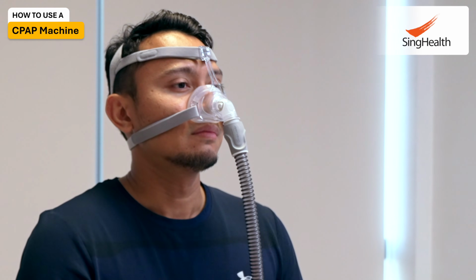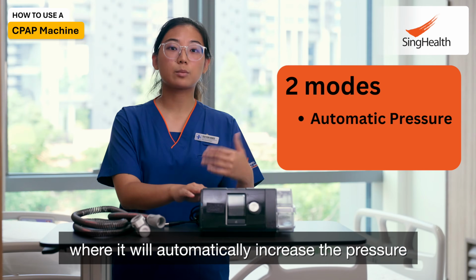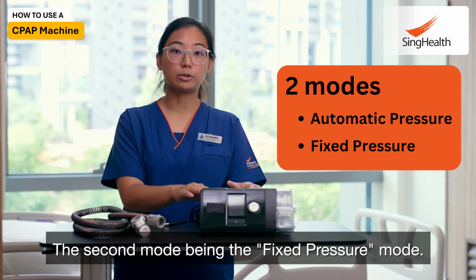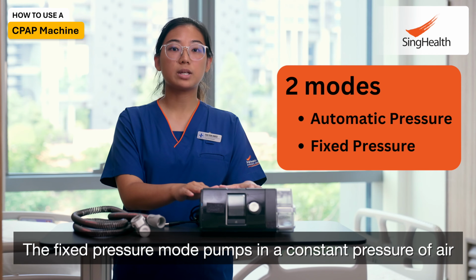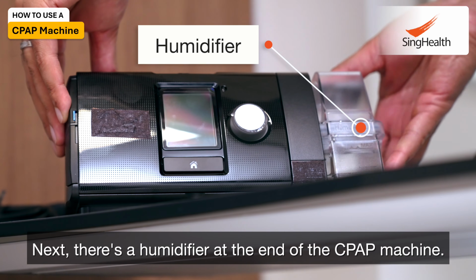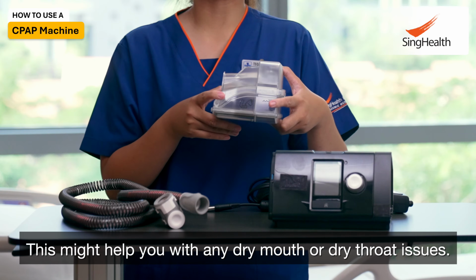It has two modes. The first being the automatic mode, where it will automatically increase the pressure when you sleep at night. The second mode being the fixed pressure mode. The fixed pressure mode pumps in a constant pressure of air when you sleep at night. Next, there's a humidifier at the end of the CPAP machine. This might help you with any dry mouth or dry throat issues.